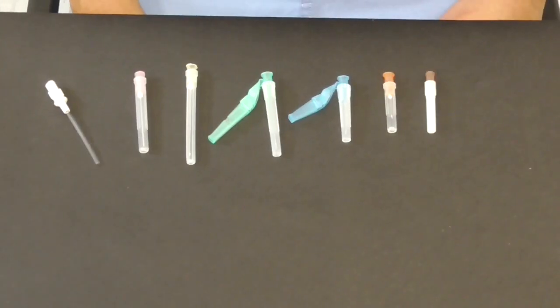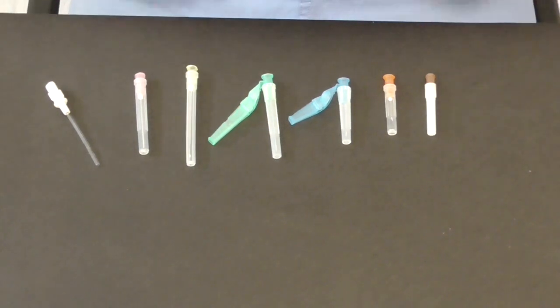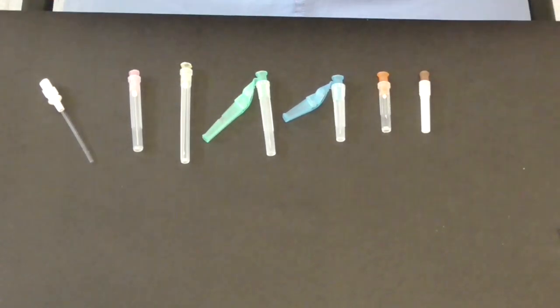So let's talk about needles. Now these are the needles that we use attached to syringes for intravenous medications or for injecting local anaesthetic, anything of that sort. Now needles come in a wide variety of sizes and they're color coded and the color coding gives you an idea of the size.